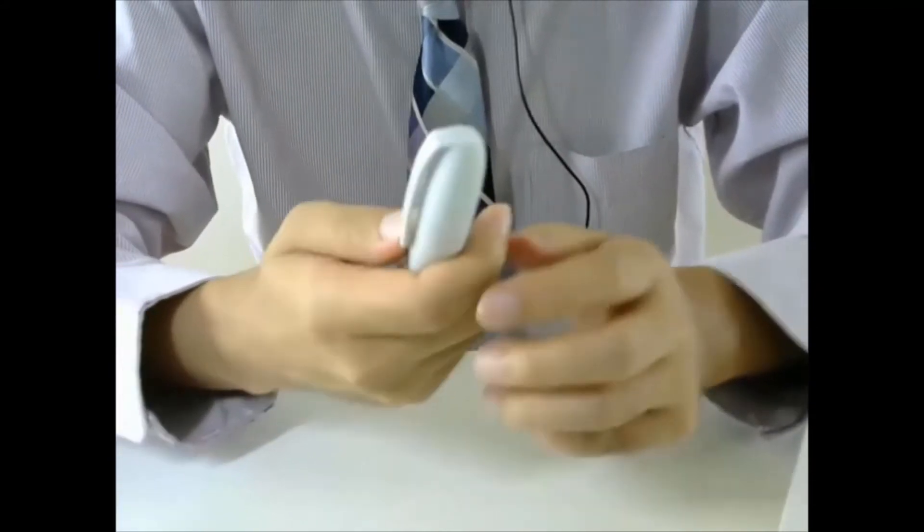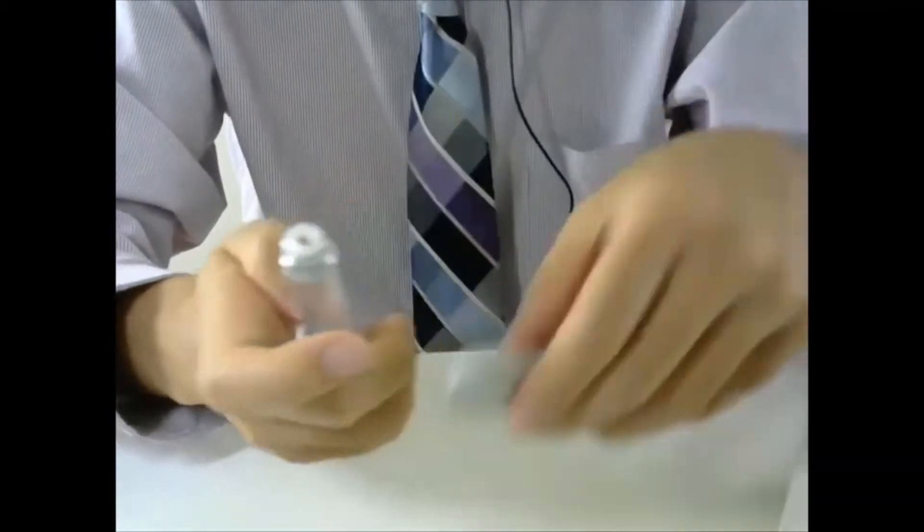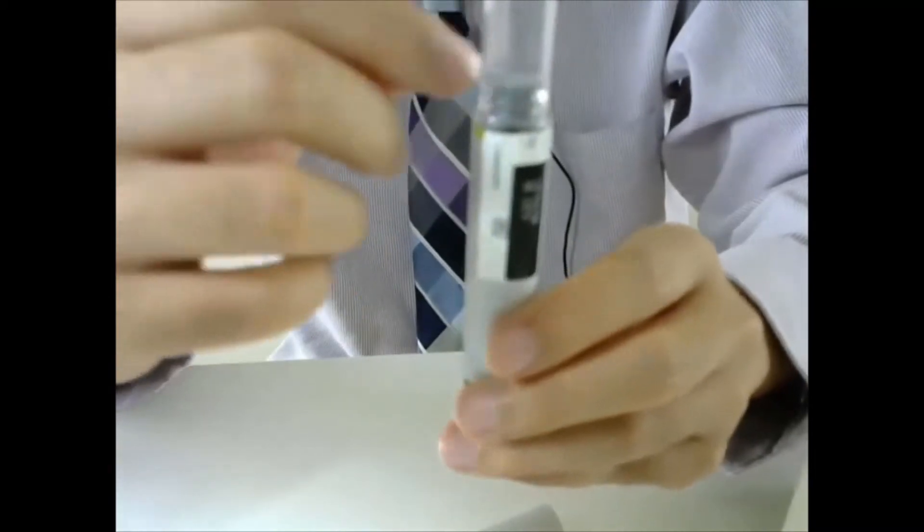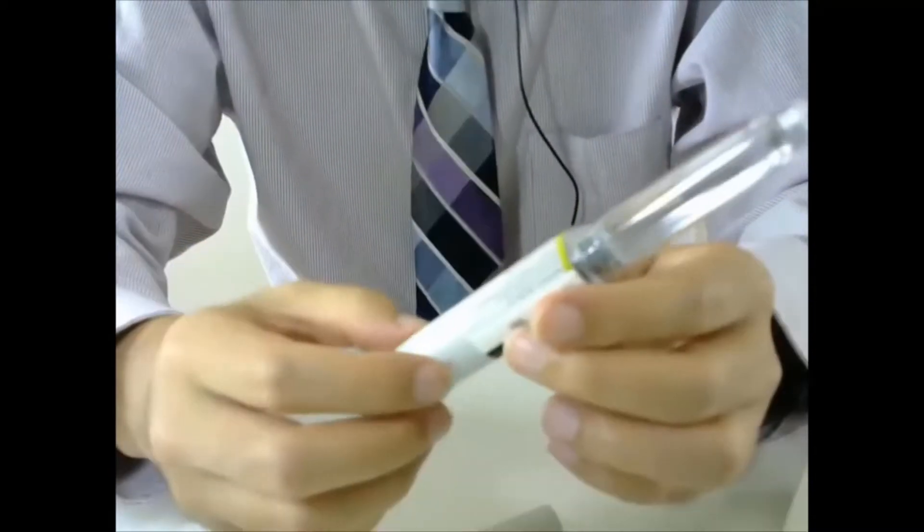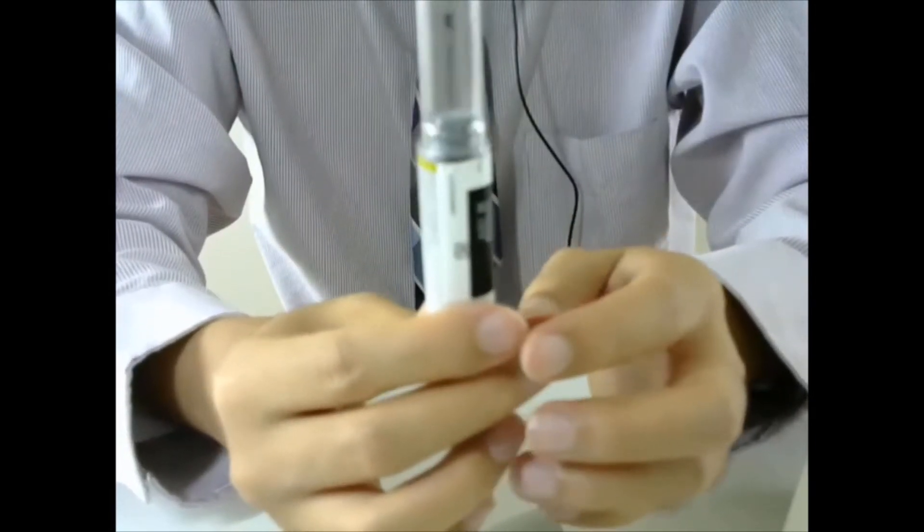The first thing you need to do is remove the cap. Now look at the liquid part. Make sure this is clear. If the liquid is cloudy, you cannot use the insulin.